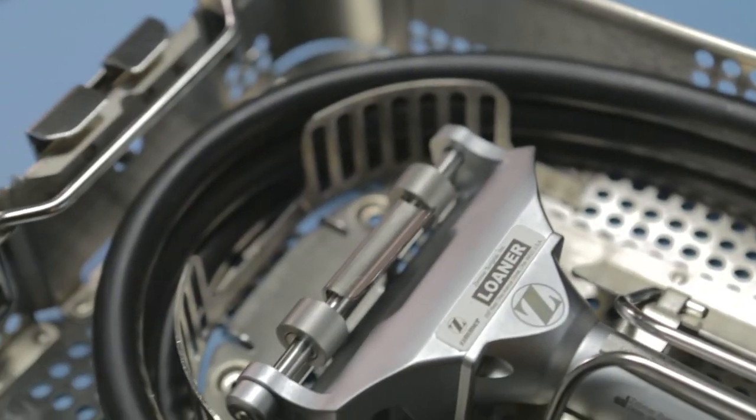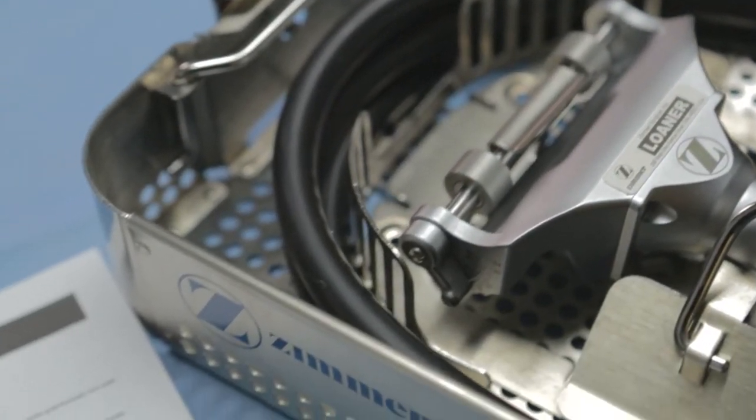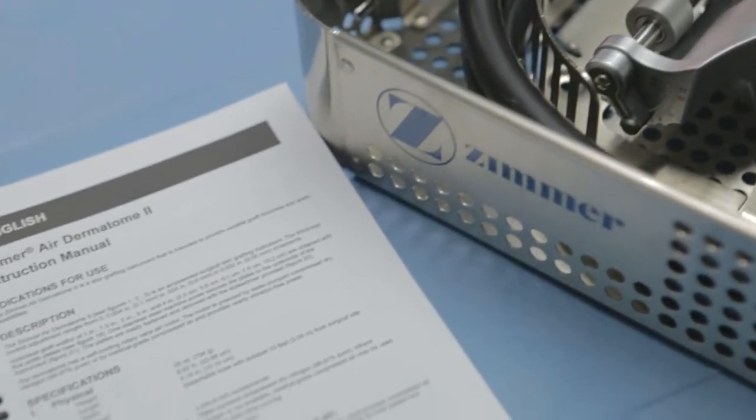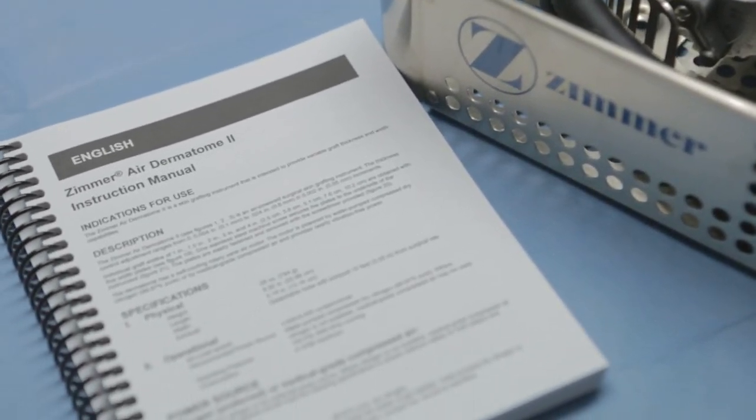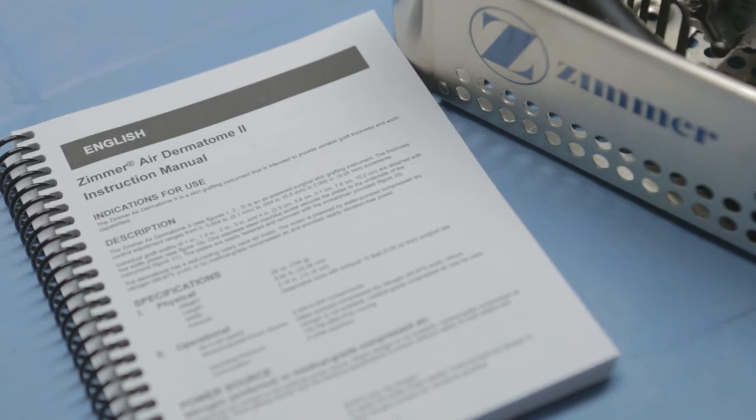To avoid serious injury to a patient and/or staff, the surgeon must be thoroughly familiar with the function, application and instructions for use of the Zimmer Air Dermatome II.